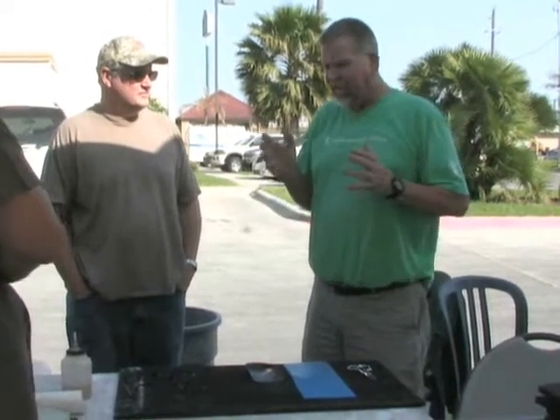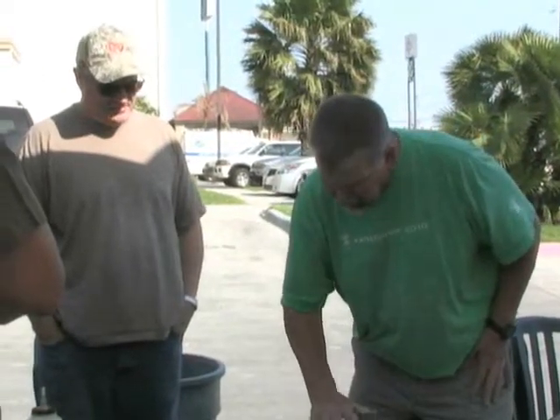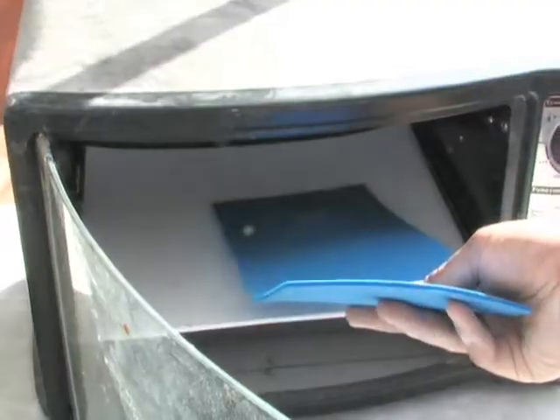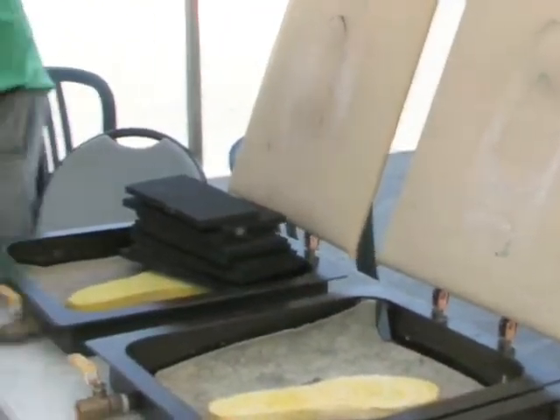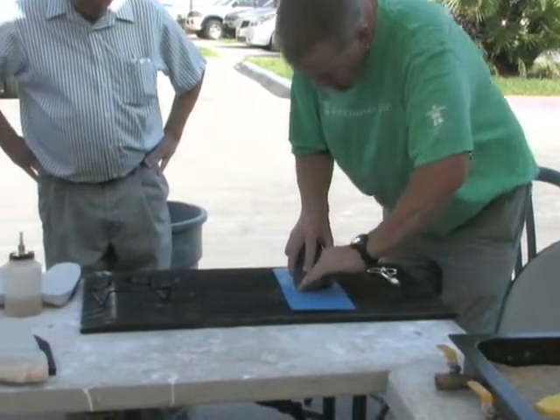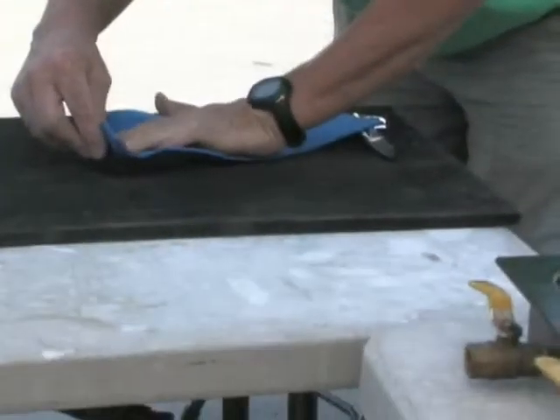You've got to let it breathe, let it come back — once it's right, it'll stick like crazy; otherwise it's going to come right off. I keep checking it — a little too tacky on the orthotic still. Now what I do is I put it down, come right up to my glue line, turn this over, and work this back into the heel cup.